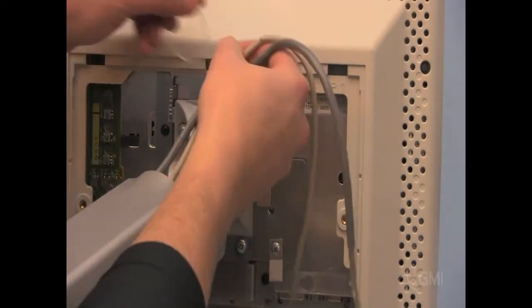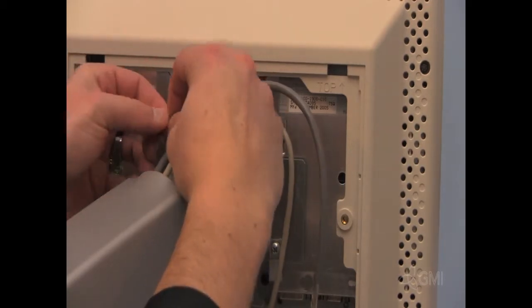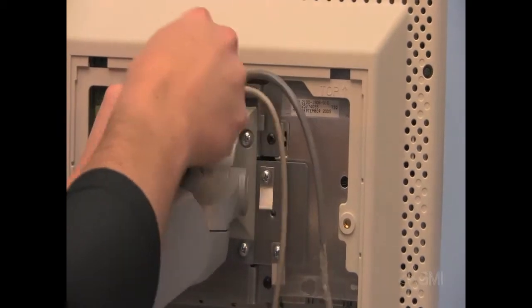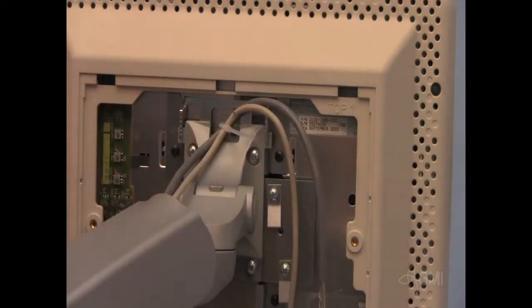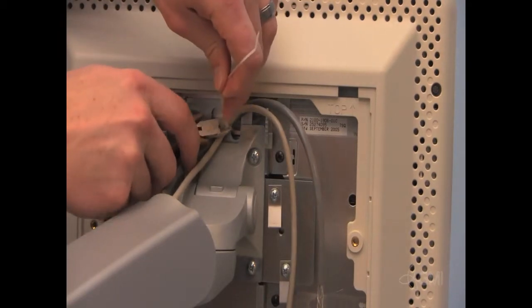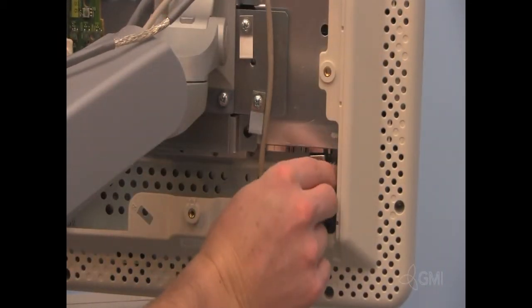Use a zip tie to secure the cables to the monitor mount. Replace both VGA and power connections.